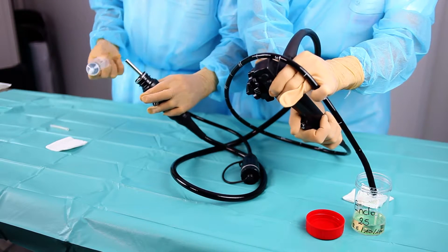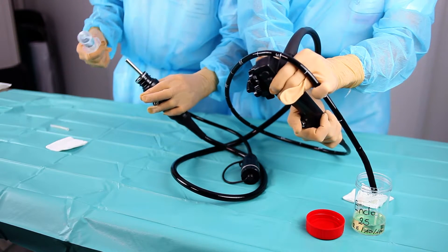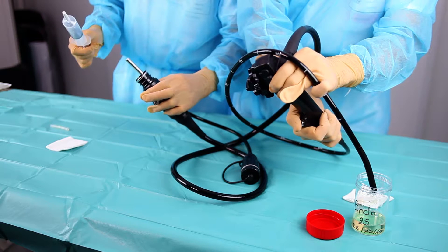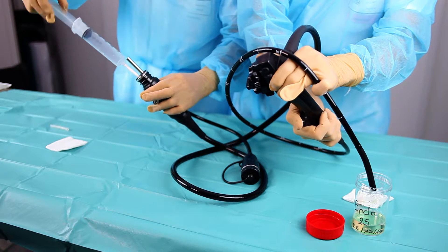Drain out each canal of the device with air using a syringe, so as to collect as much liquid as possible.